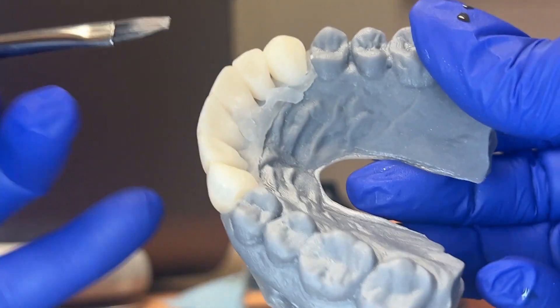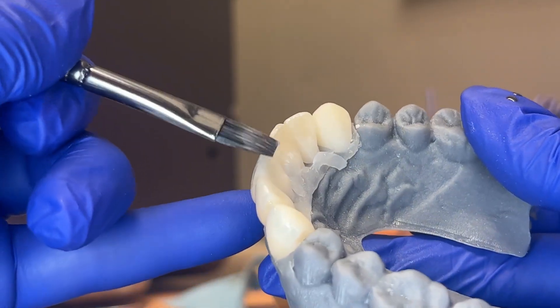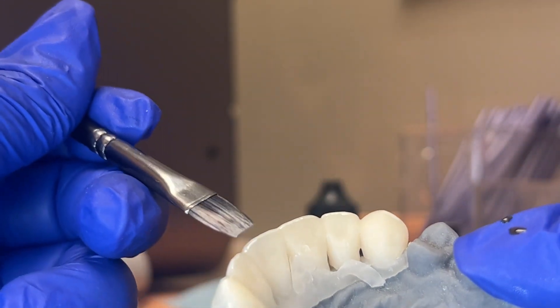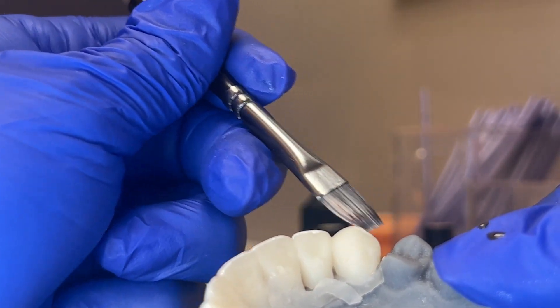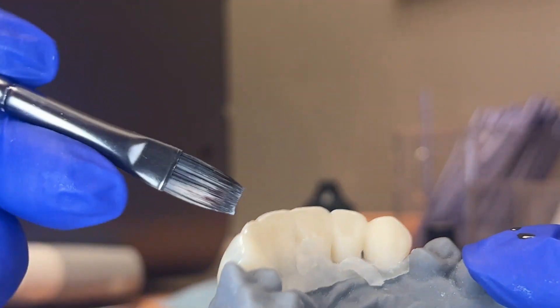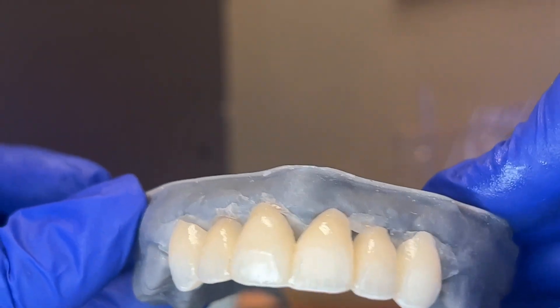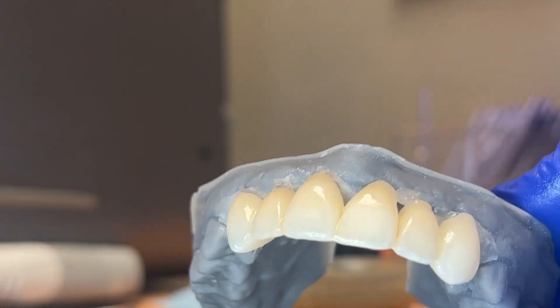I'm going to do a little bit of white for an incisal halo. The pigments do separate, so make sure you mix your glaze really well. For the incisal halo I like a flat brush so I can go just along the incisal edges and paint it — a little bit on the canines too, because you do still get an incisal halo on the canines. Just that little bit of incisal halo, and then once I put the final glaze on I'll go in and sharpen these embrasures a bit.